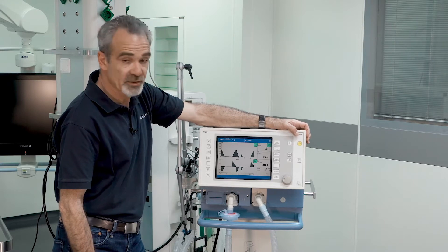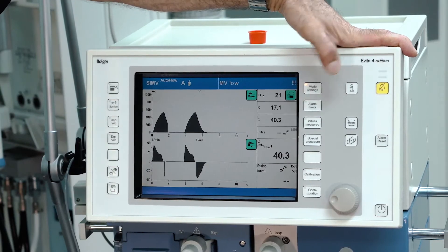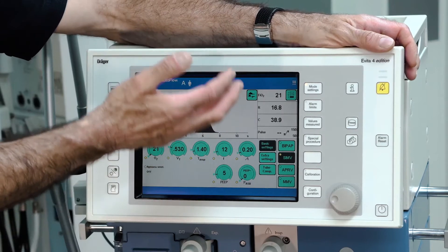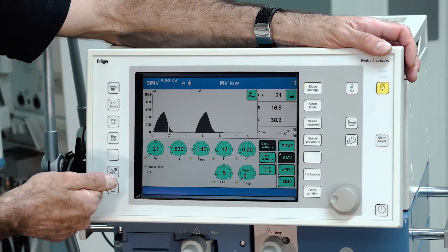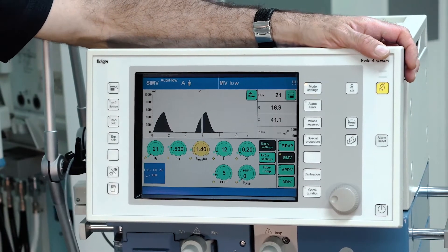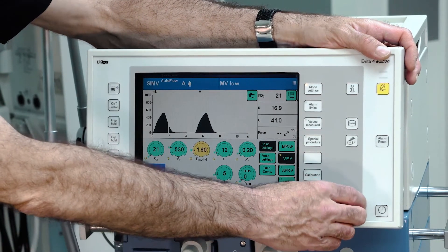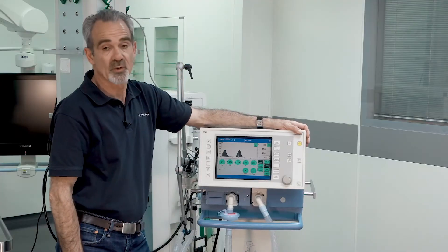If you would like to change something in your ventilation, select mode settings. You will see the adjustable values of the current ventilation mode. To change a value, just push the button — the color turns to yellow. Change the value using the rotary knob and confirm the new adjustment with the rotary knob.